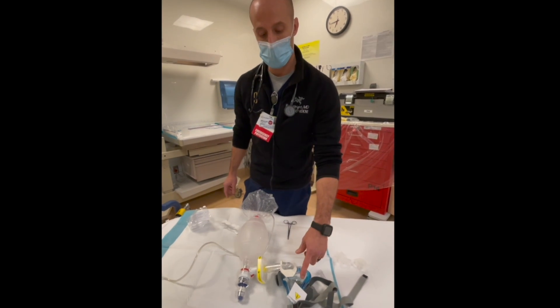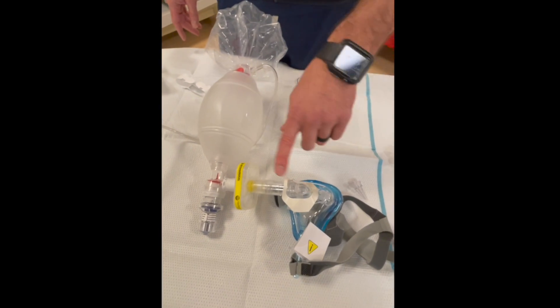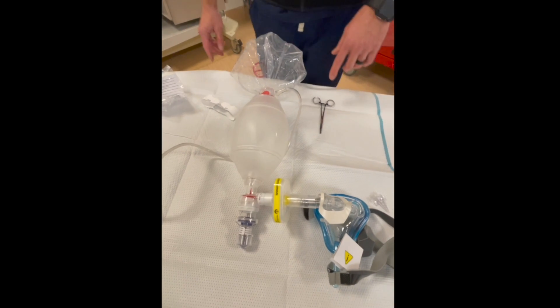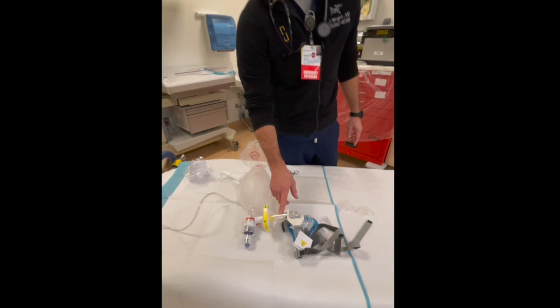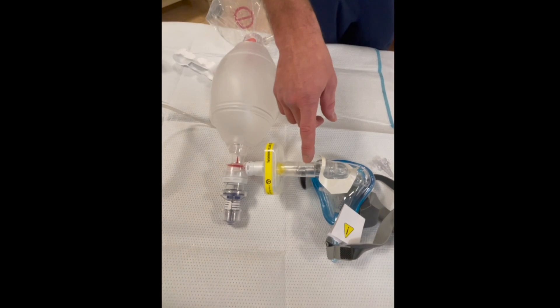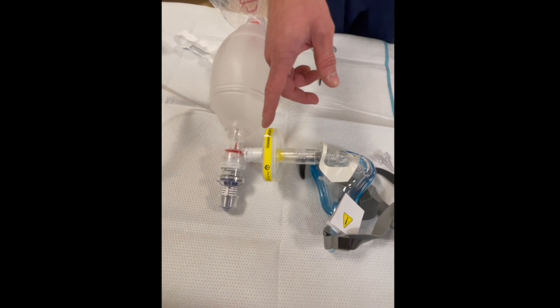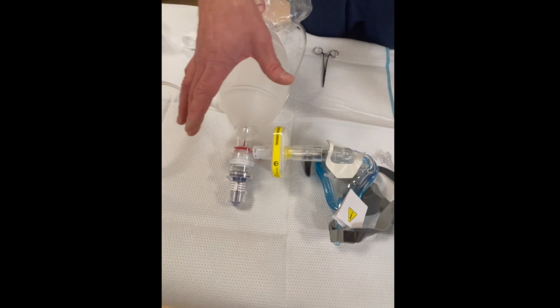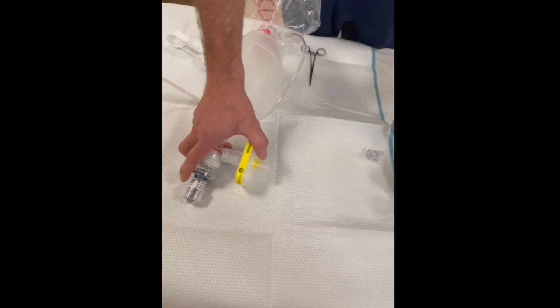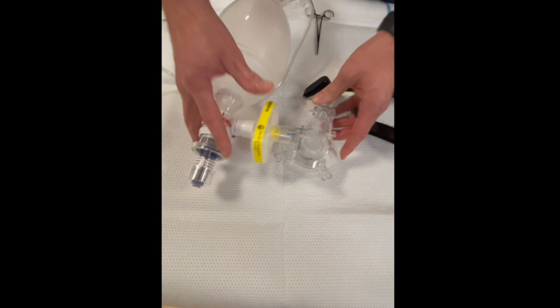Just make sure key things: remove the valve, cover the exhaust port, and make sure that you have a nice clean connection. I also found when I used this on one of my patients, this extension here does create increased dead space which can work against you when it comes to resuscitating a patient.